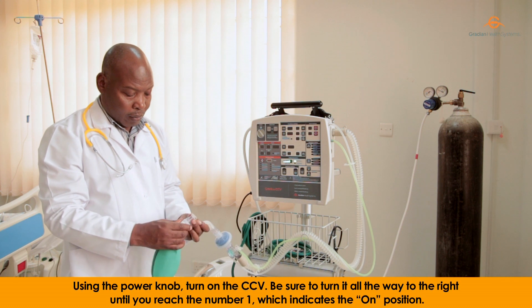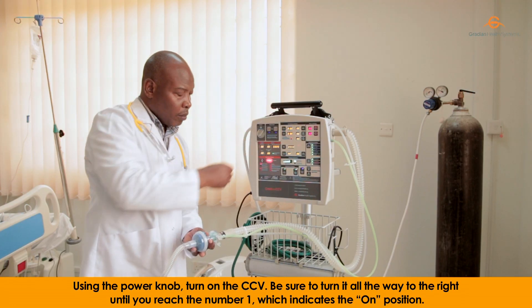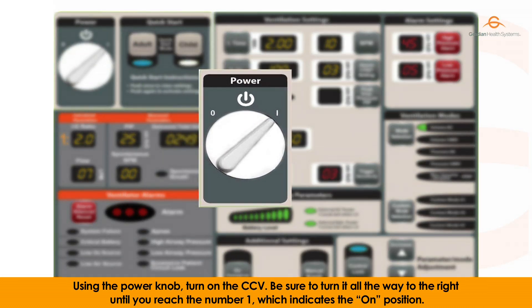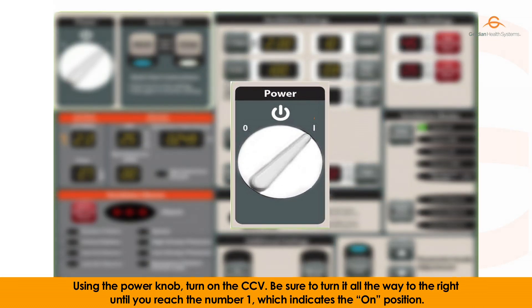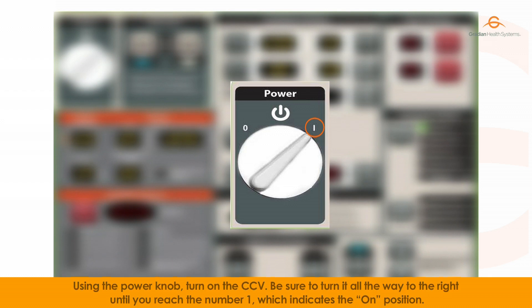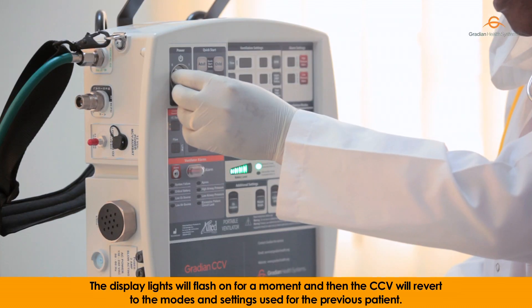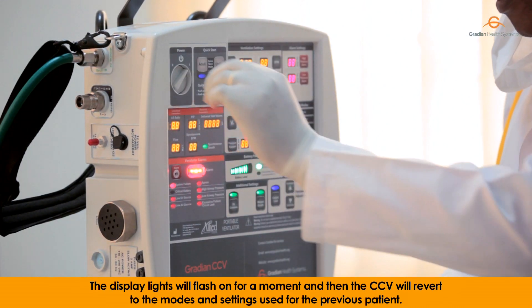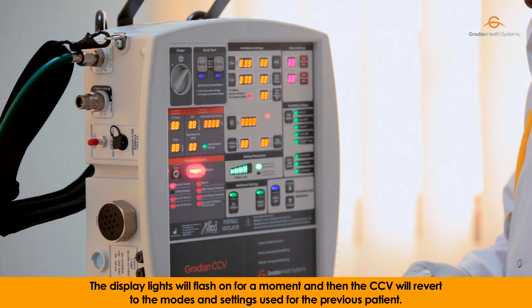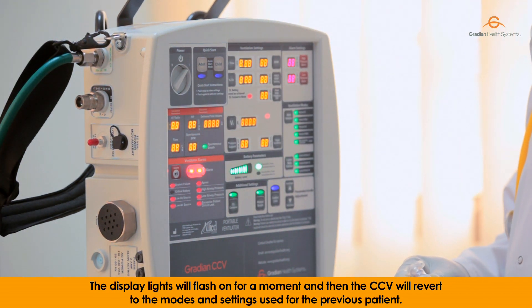Using the power knob, turn on the CCV. Be sure to turn it all the way to the right until you reach number 1, which indicates the on position. The display lights will flash on for a moment and then the CCV will revert to the modes and settings used for the previous patient.